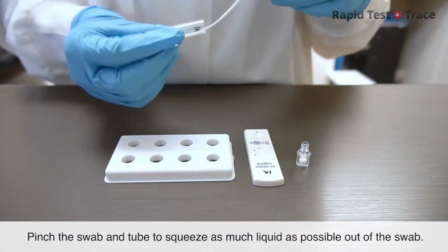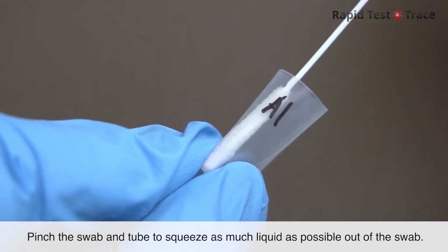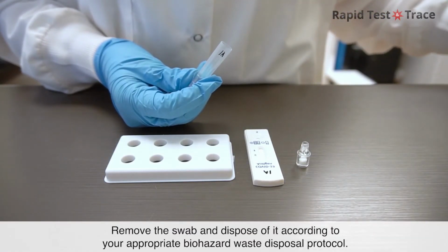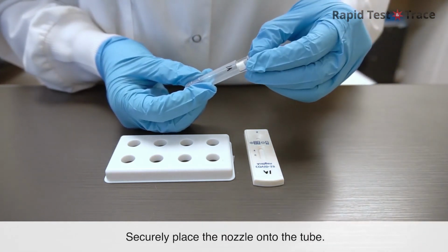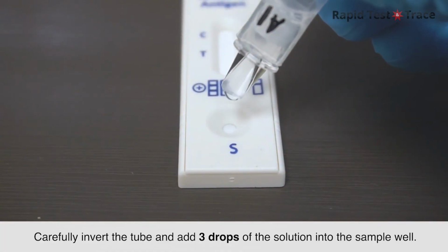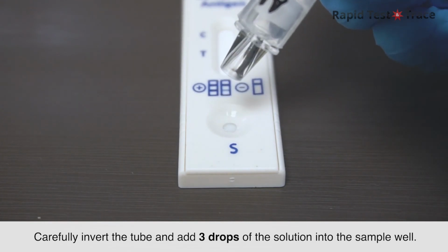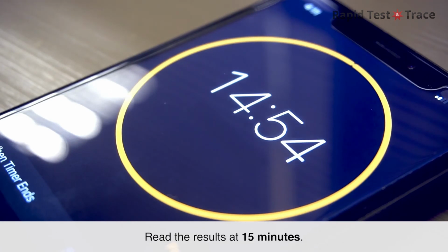Pinch the swab in the tube to squeeze as much liquid as possible out of the swab. Remove the swab and dispose of it according to your appropriate biohazard waste disposal protocol. Securely place the nozzle onto the tube. Carefully invert the tube and add 3 drops of the solution into the sample well. Set a timer. Read the results at 15 minutes.